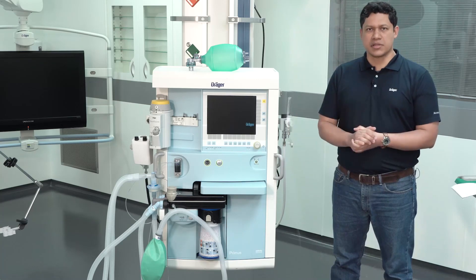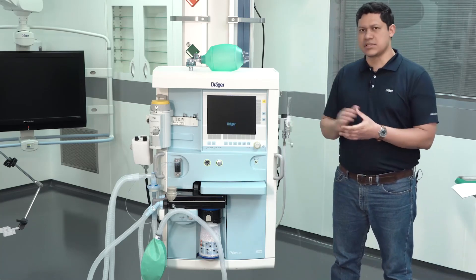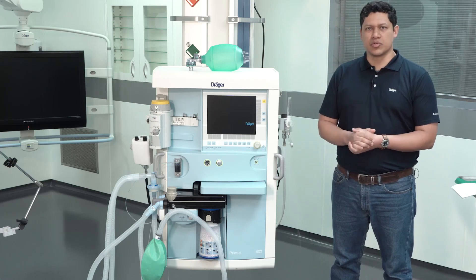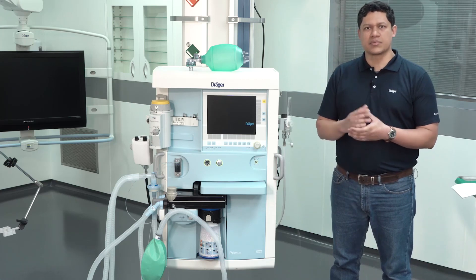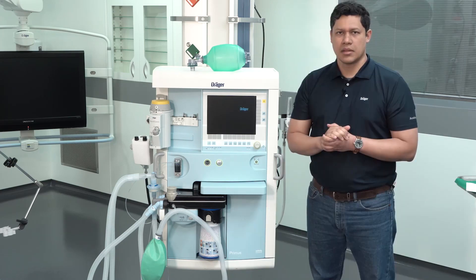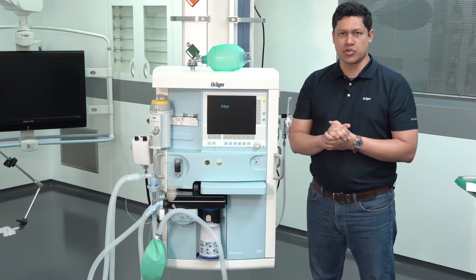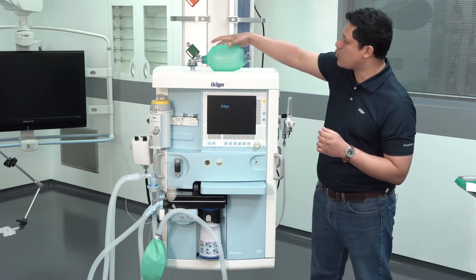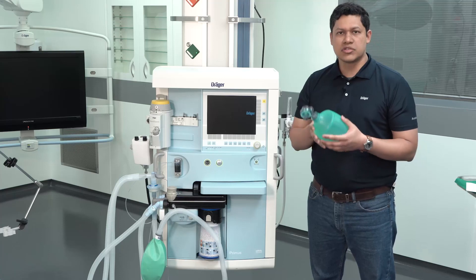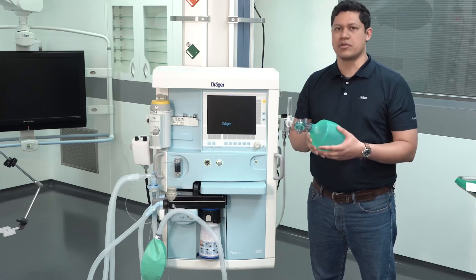Before connecting the patient, verify the readiness of the systems and accessories. More details on how to do that will be explained later in this video. A separated external manual breathing valve should always be in the workplace to secure patient ventilation in the case of any failure.